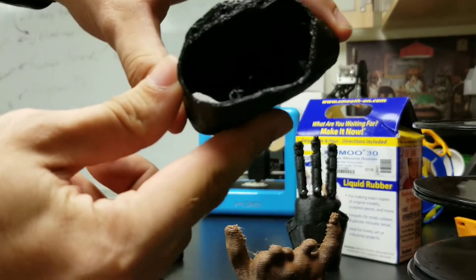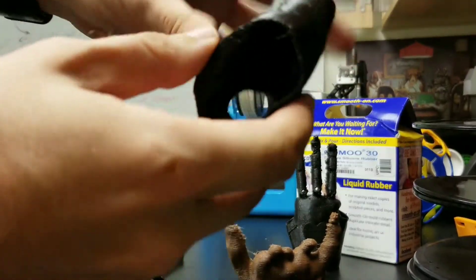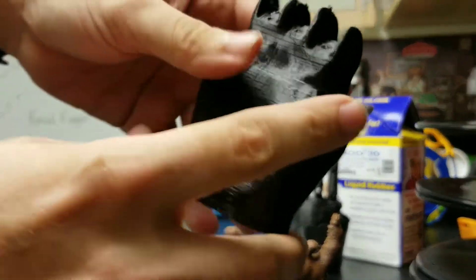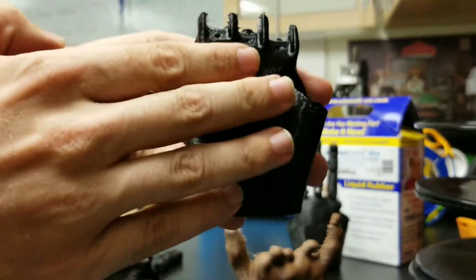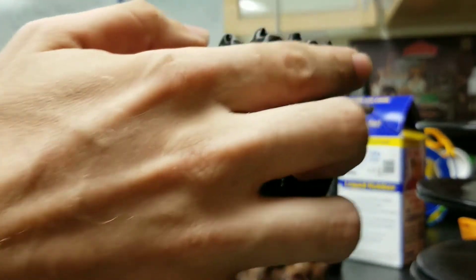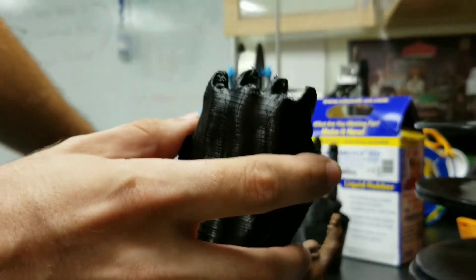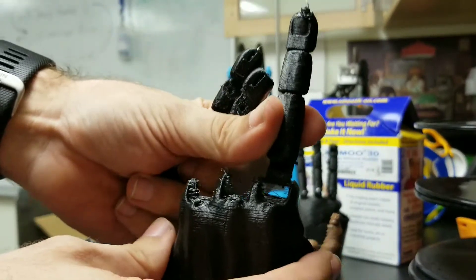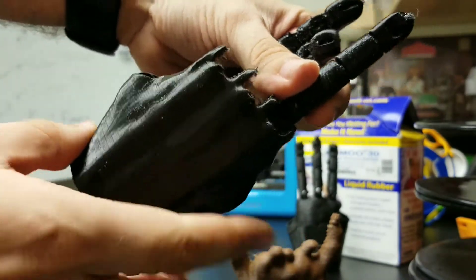We can't really show you the inside, but there's spacing to accommodate these leftover fingers, and there are spaces for the pinky and for the thumb to go. We took this customized gauntlet and sliced off the finger attachment joints for the flexi hand from Steve Wood. We have flexi fingers that we can print very reliably that just pop right in, so we can attach our flexi fingers onto our customized gauntlet and get a working hand.